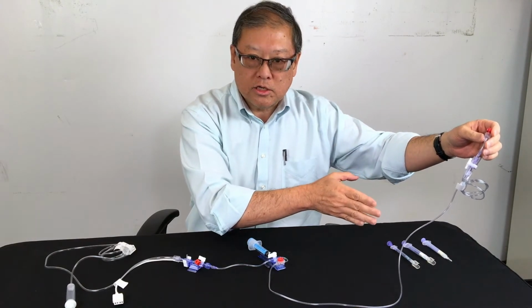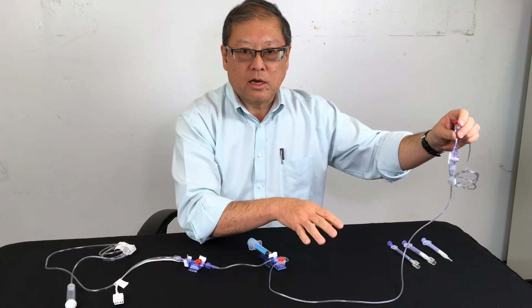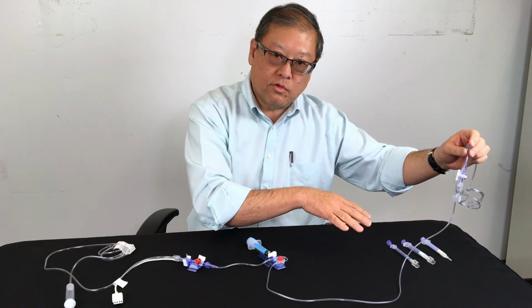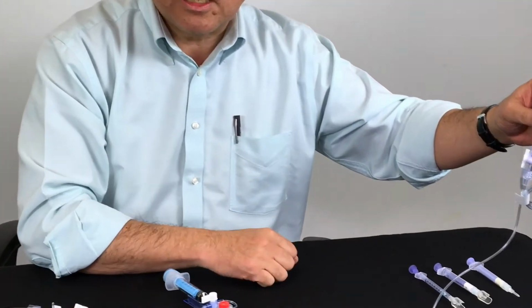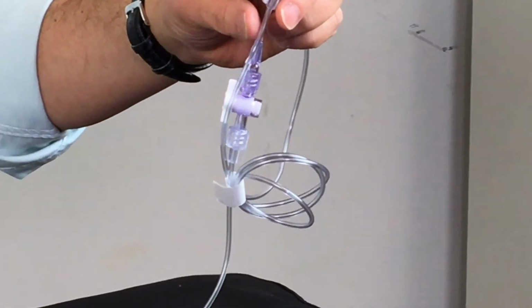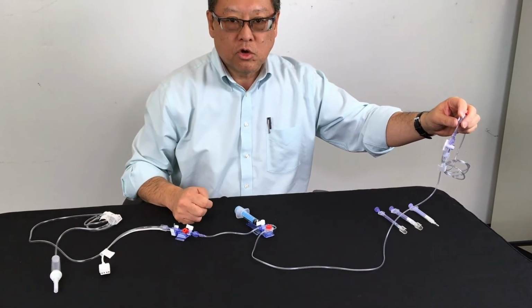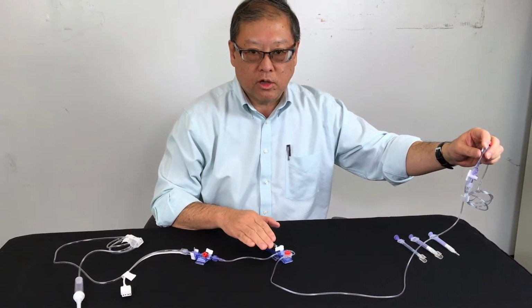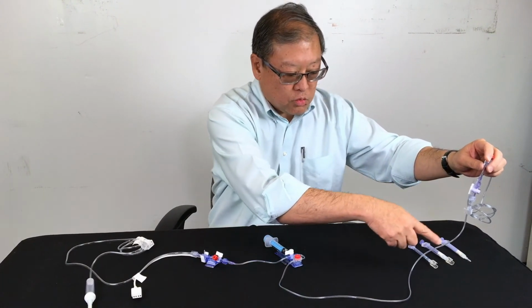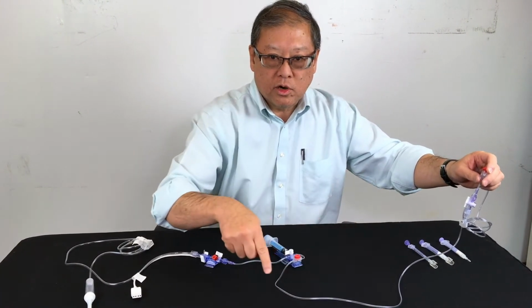When these arterial lines aren't in use, it's important that the blood does not clot inside the line. So that's the purpose of the waste fluid. The waste fluid is usually saline, sometimes it's saline with a heparin mixed with it, but basically used just to keep this arterial line right here open. So whenever you're drawing from an arterial line catheter, what you need to do is pull off all of this waste fluid first, and the blood follows that waste fluid.